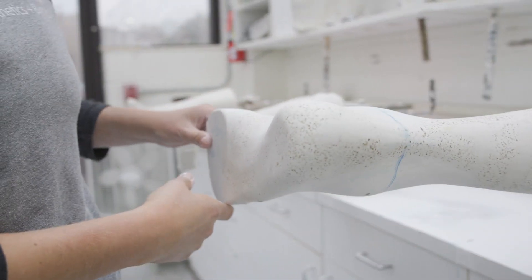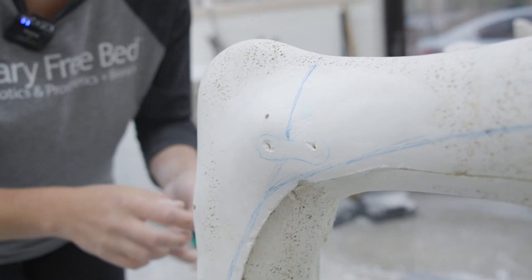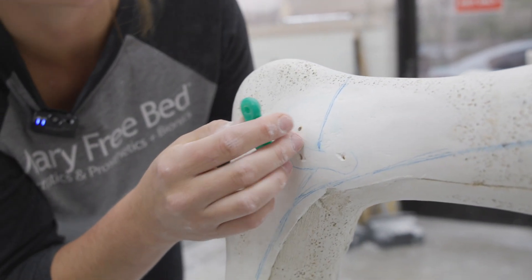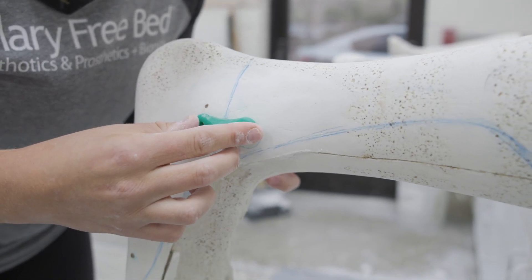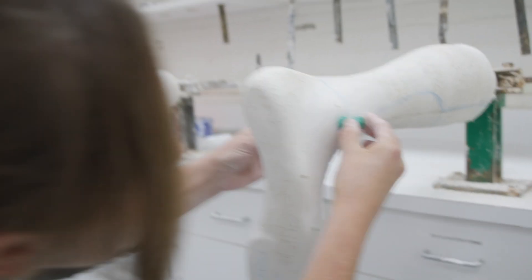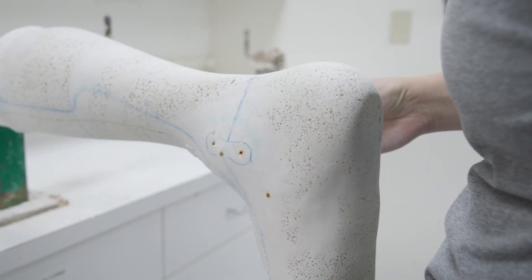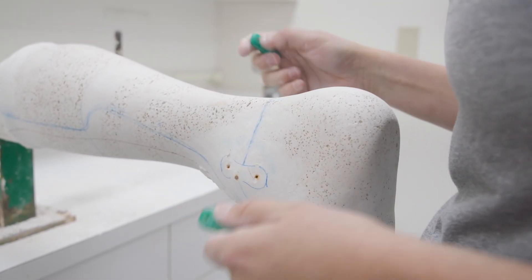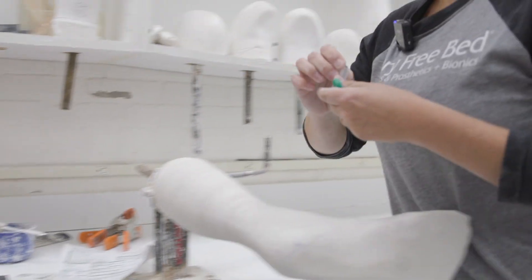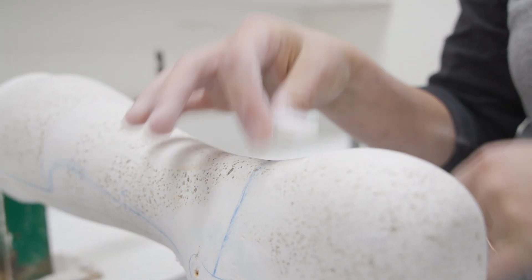This one also has a Tamarack joint that will be placed. To place Tamarack joints, you have to make sure it's completely straight. I always start out looking at the very apex of each malleolus — you want these to be clearly parallel, up and down, forward and backwards; you kind of have to get a couple different views. Together this is going to work as a hinge joint for the AFO. These will be nailed in so they don't move while you're pulling plastic. From the middle of where these will be placed, you draw your line up and that's going to be your cutting line when you're articulating it. Your stop will also be placed right here before you pull, along with another piece of plastic the same as what you're going to pull — that will help with the stop.